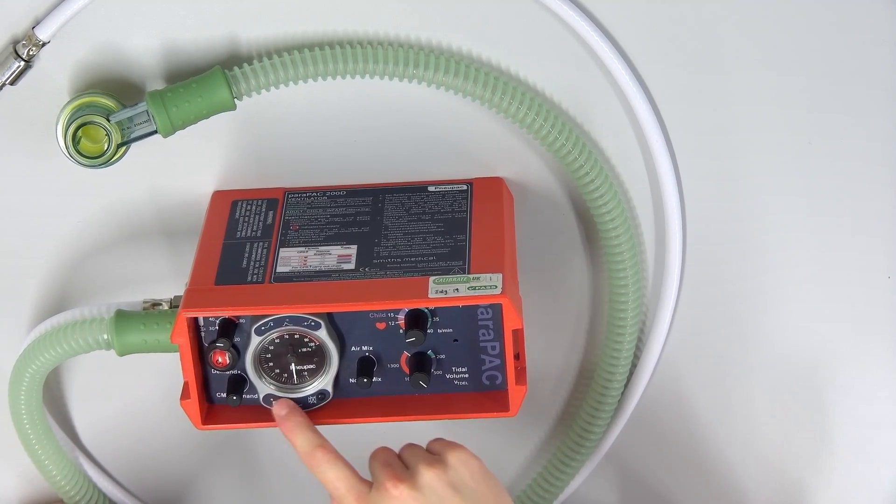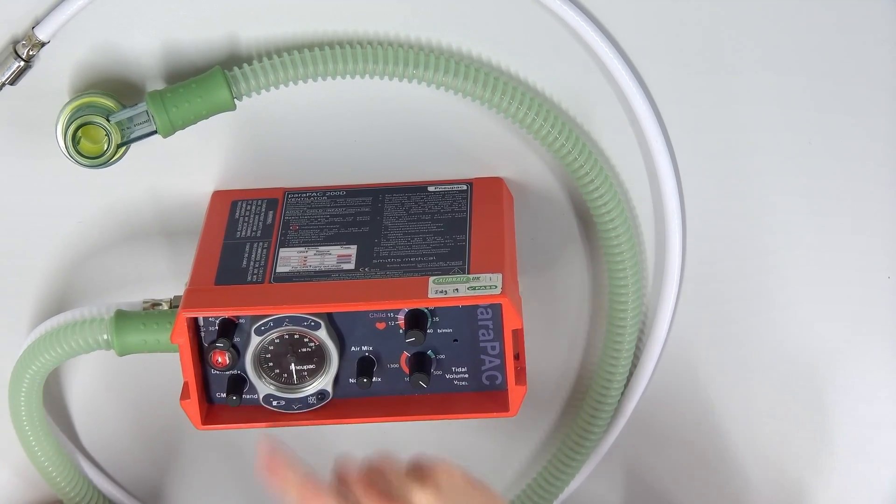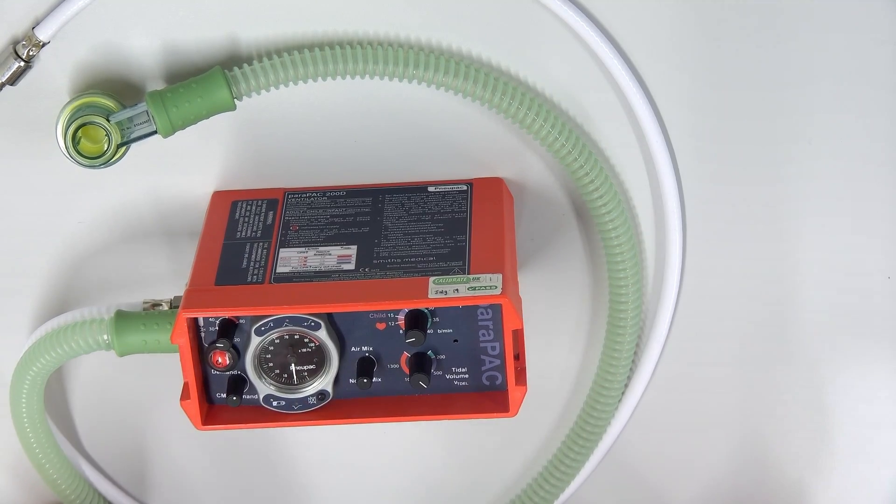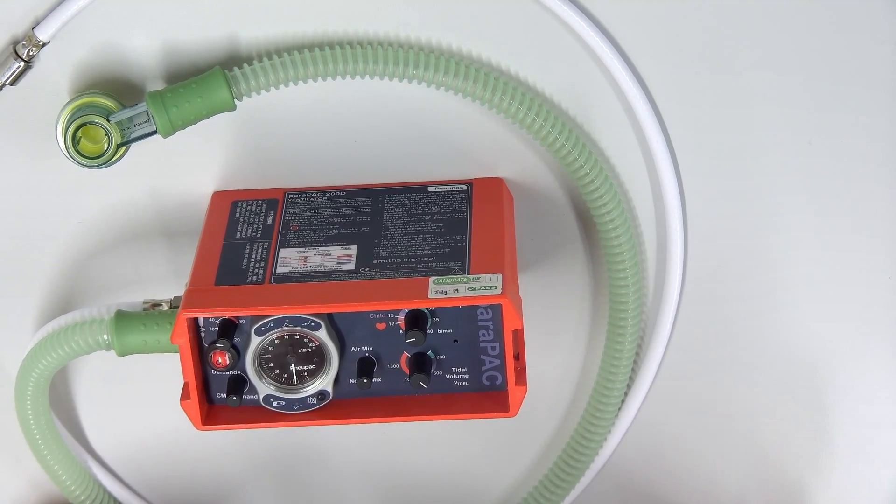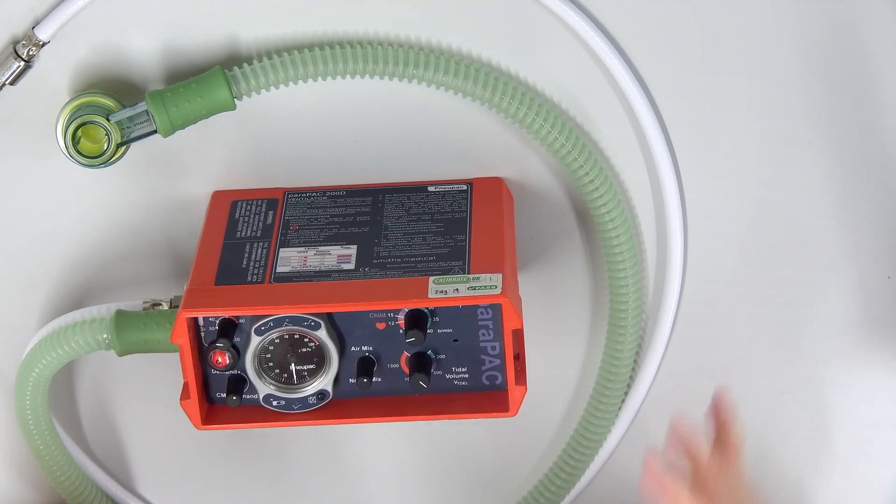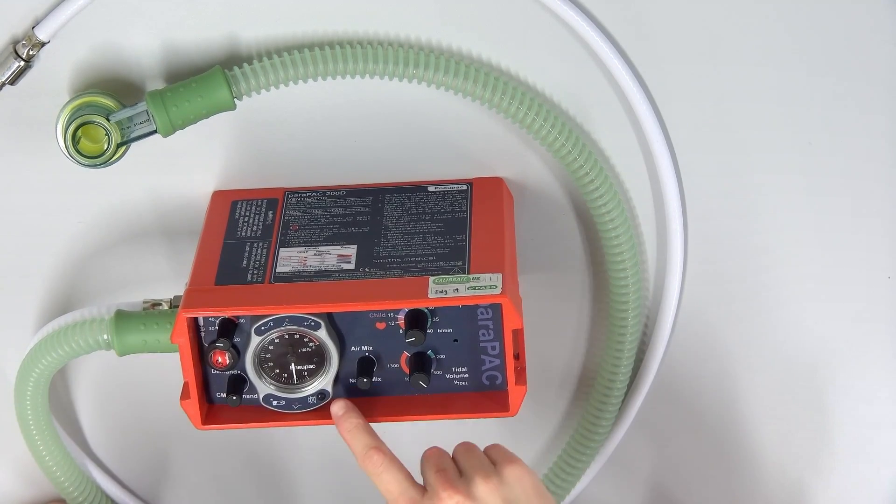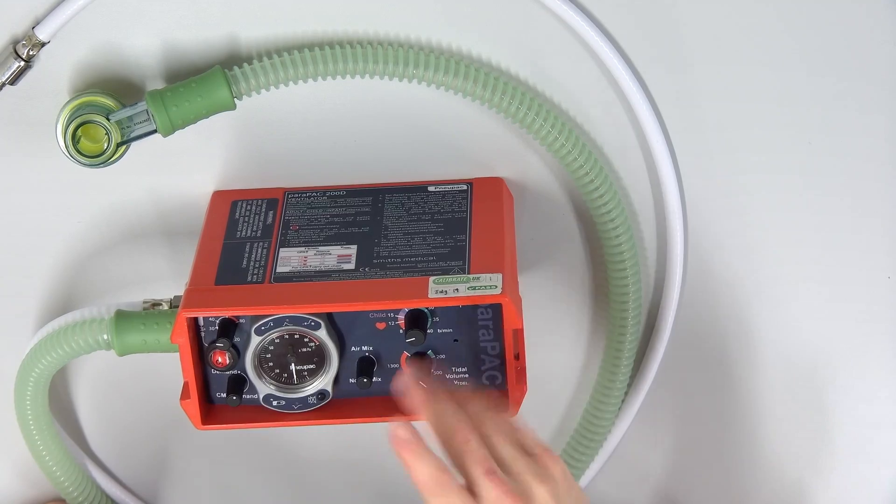The bottom left is the battery. It'll flash green if the battery is happy or flash red if the battery is not happy. The bottom indicator is the opposite of the top one. And that is when the patient inhales. So if you see this bottom one flashing green, it actually means the patient has spontaneously started to breathe, which, like we said, isn't great. And then therefore putting it on CMV is a bit more challenging. The bottom button here is to mute the alarm. So I'll turn it on, it'll make some beeping noise, and then I will tell you more about that.